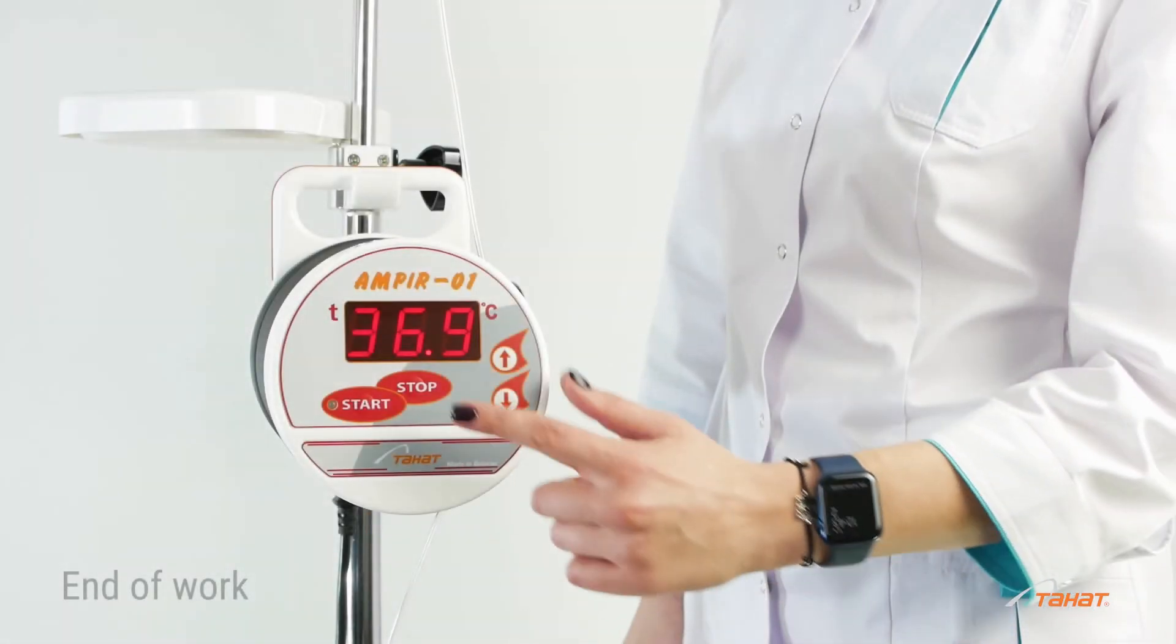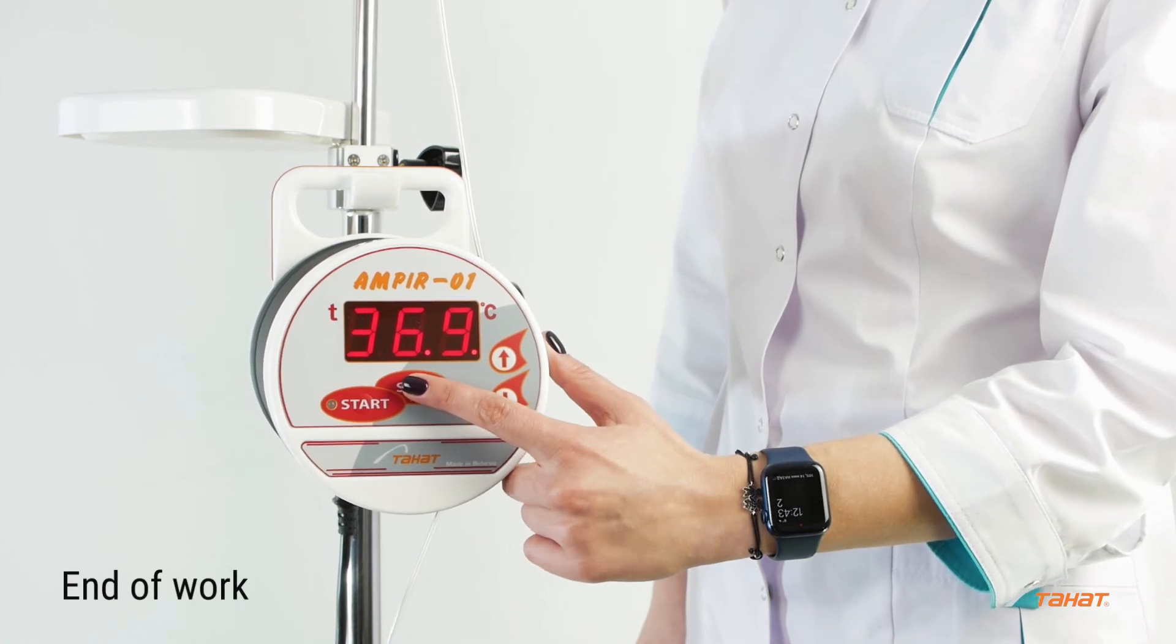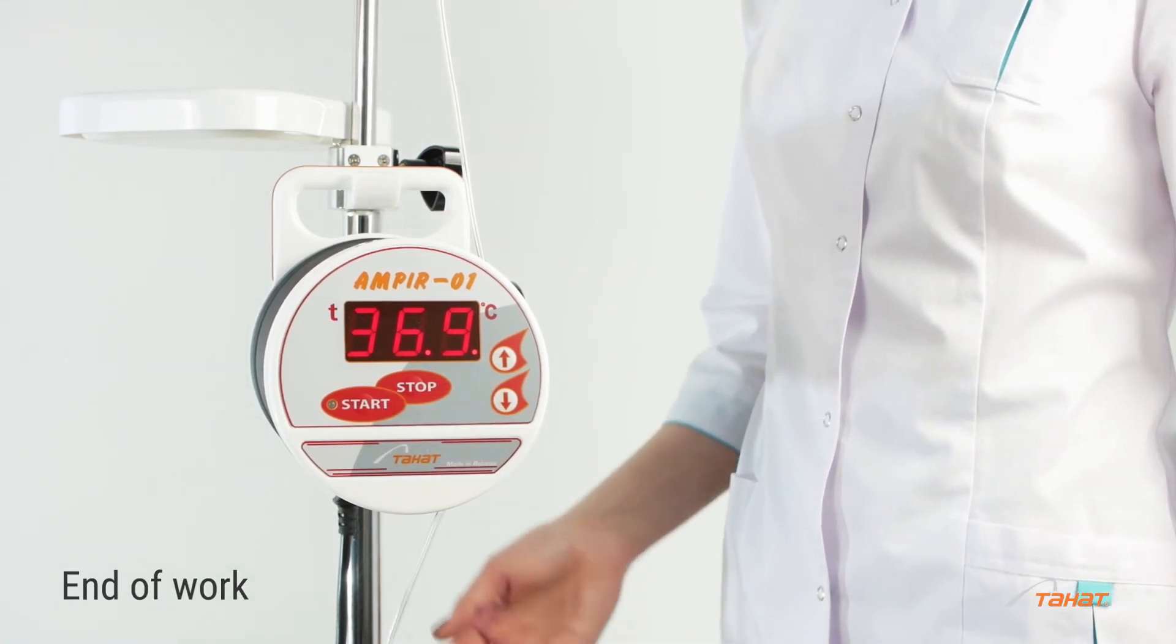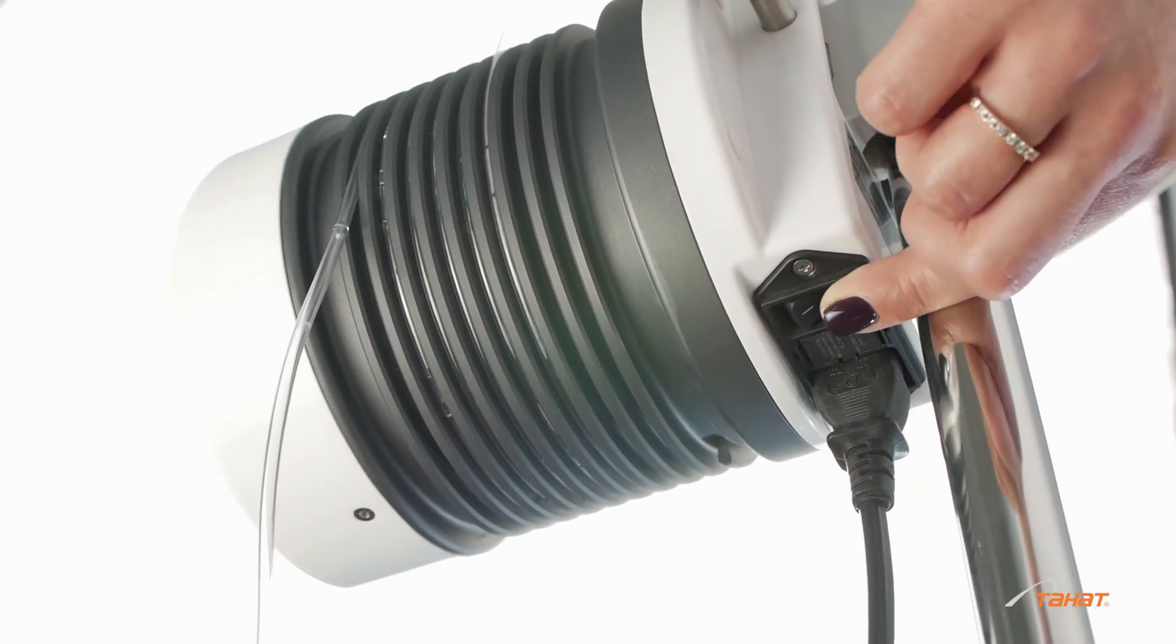At the end of the infusion transfusion therapy, press the stop button. Switch off the device and disconnect from power.